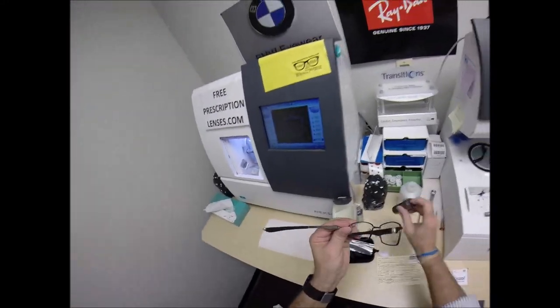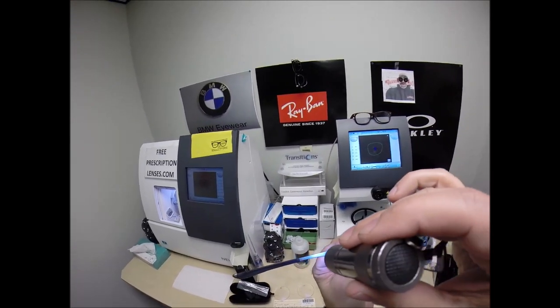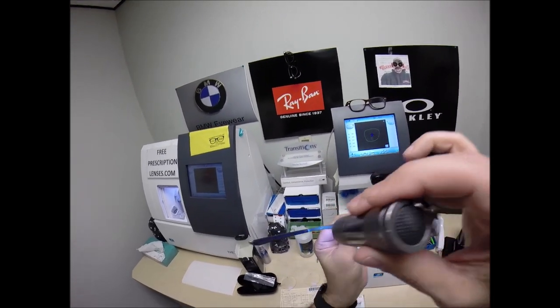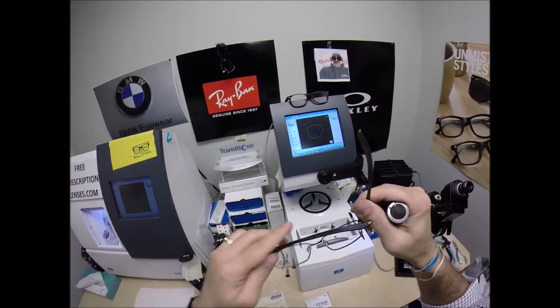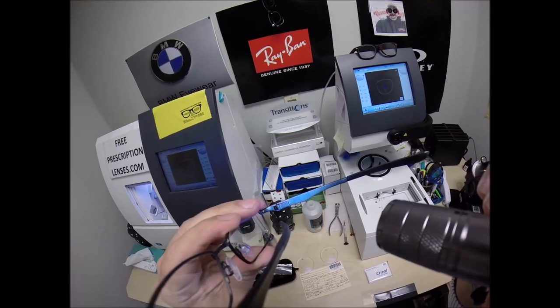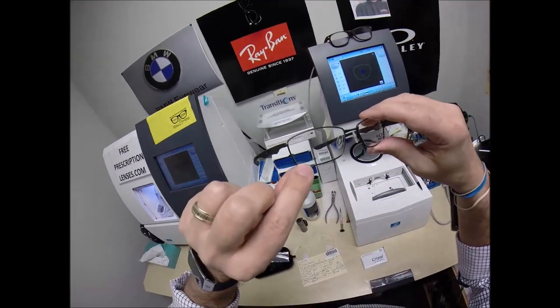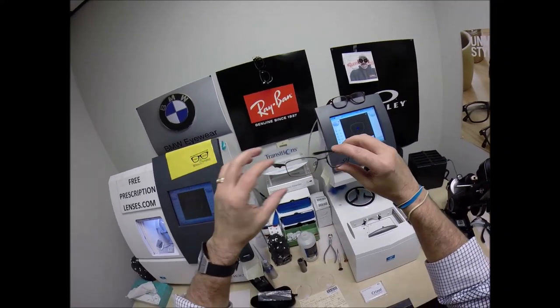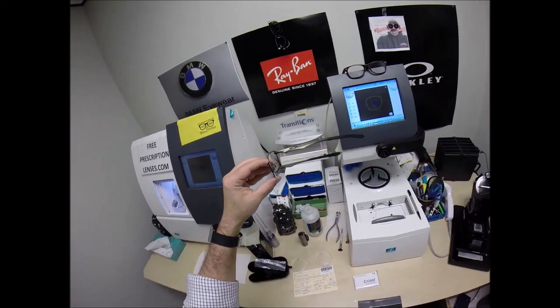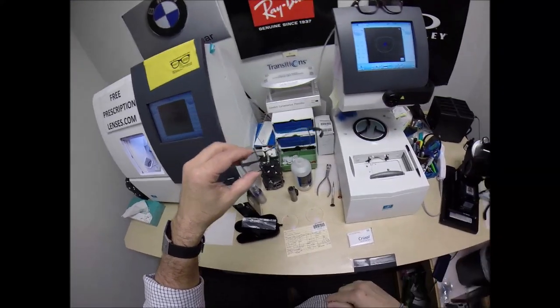This is the Oakley 5040. Color 03, size 53, which is the pewter. Again, this is the Wingspan. This is a titanium frame — don't take my word for it, it's printed on the frame. Very strong, very lightweight, very comfortable frame. This is a full metal frame, meaning the metal goes all the way around.